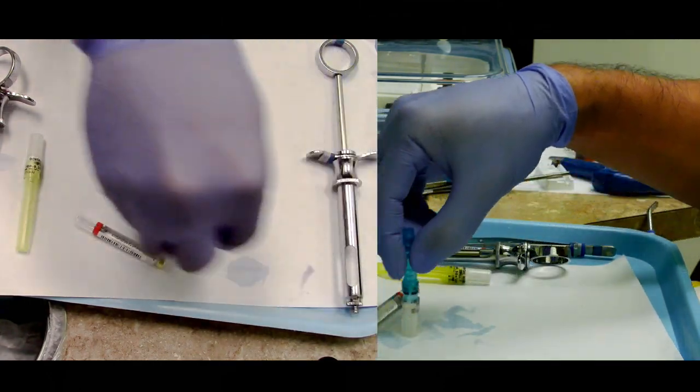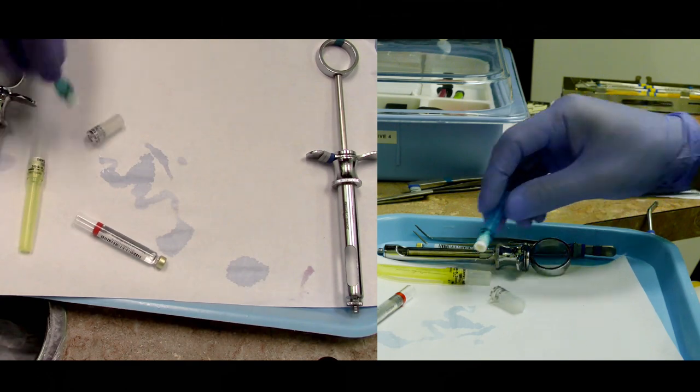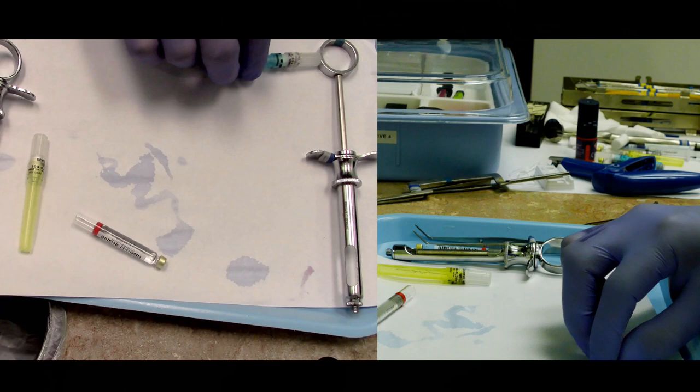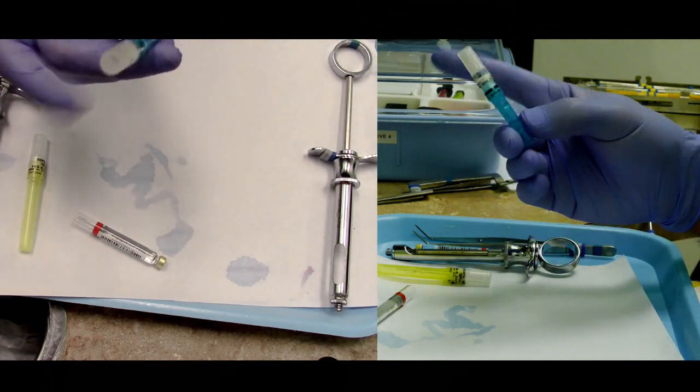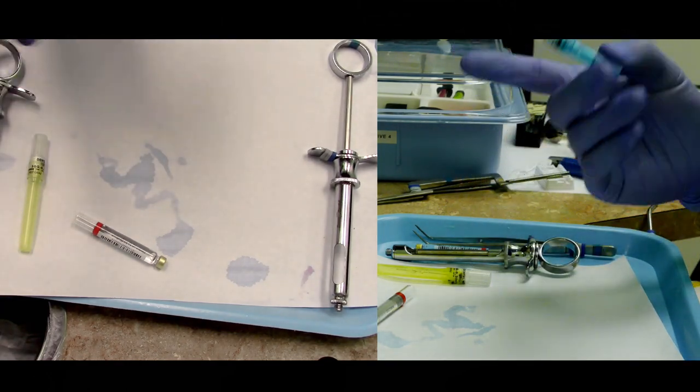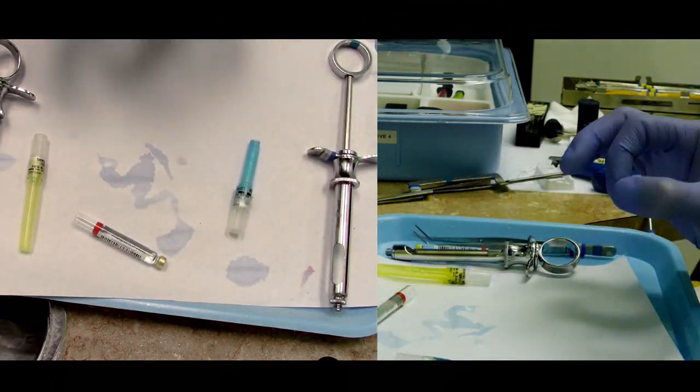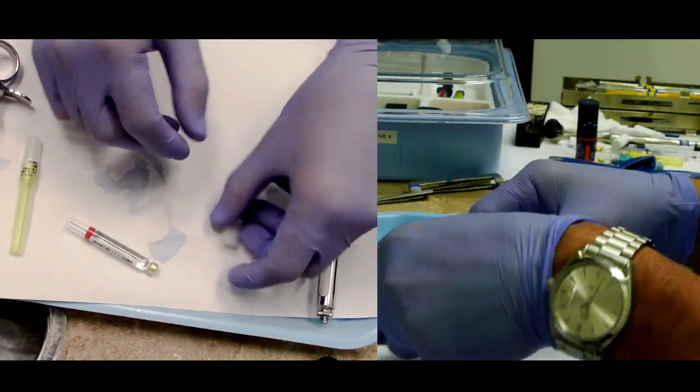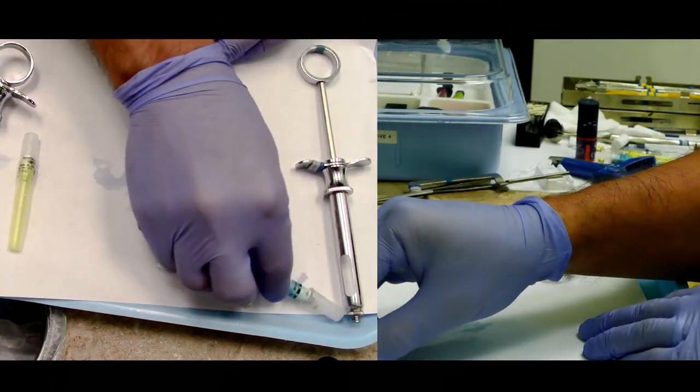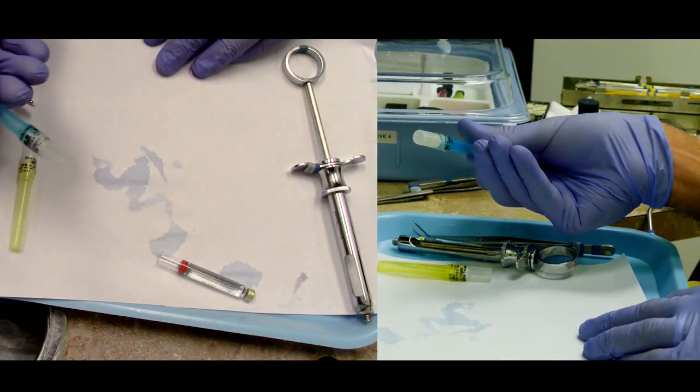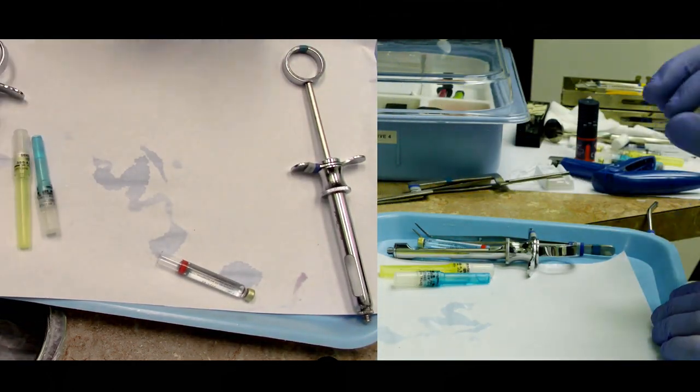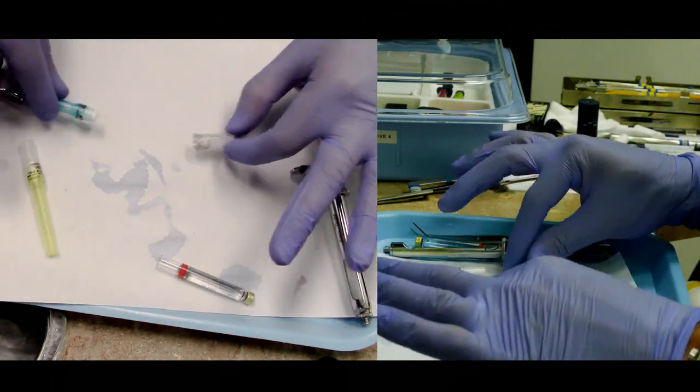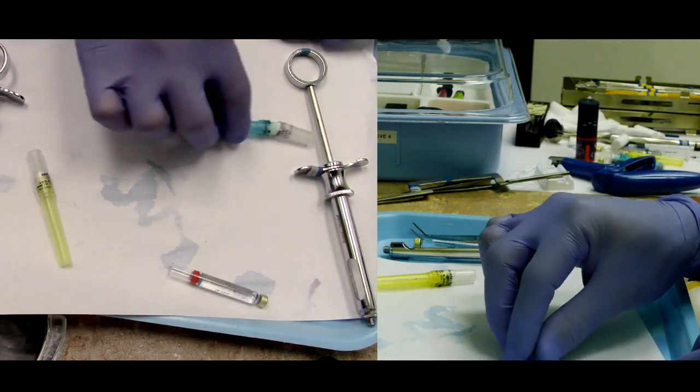Alternatively, if you can, you can flip it upside down and cap it, but just find out what works best for you. I prefer to scoop it upwards, but again look—it's moving around the tray. I'm not using my other hand, but I did finally get it and now it's safe to finish capping. Remember with needles, never ever use two hands to connect those needles. That is going to be a recipe for disaster. Even on the short end, you must cap it with just one hand.